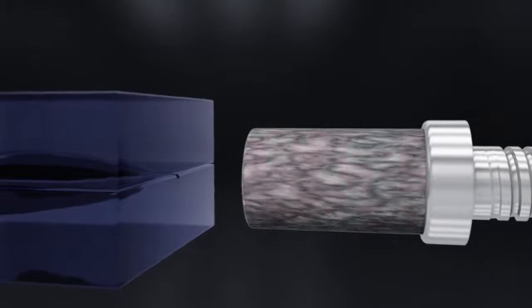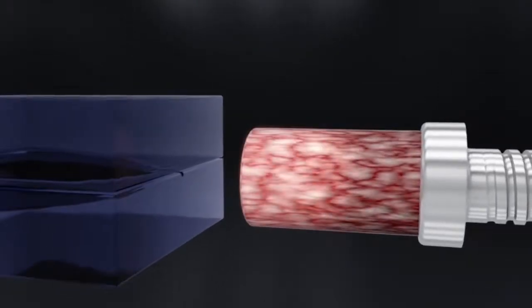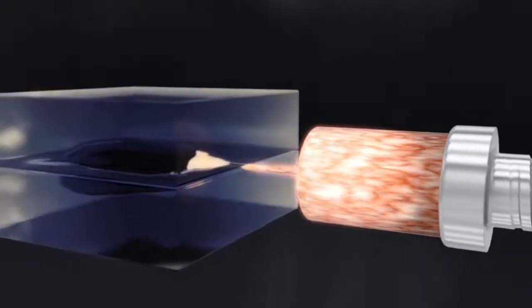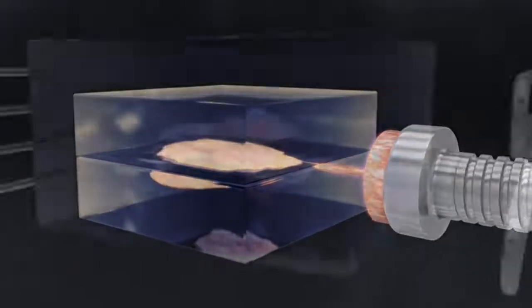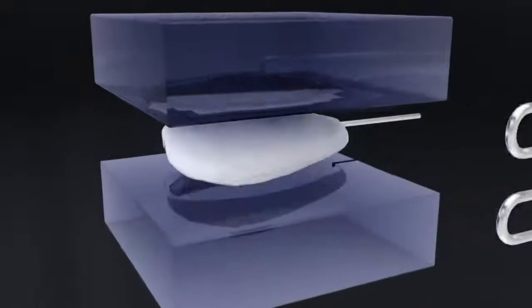In a first step, this material is heated and injected into special moulds. At over 300 degrees Celsius, the mass is now polymerised thermally as well as through light and tempered for half an hour. This results in a solid and yet flexible blank.